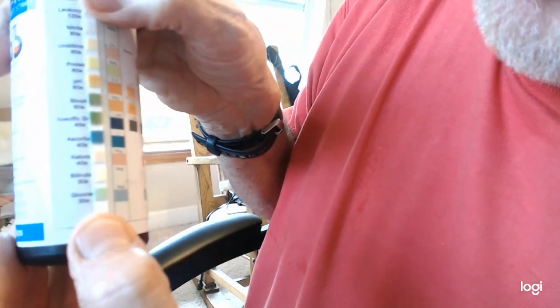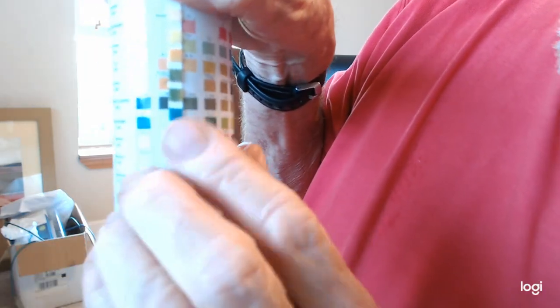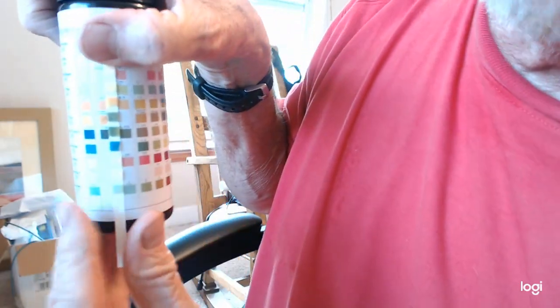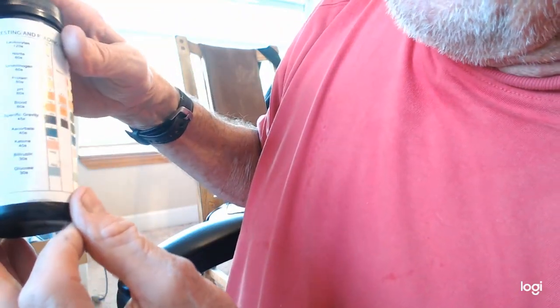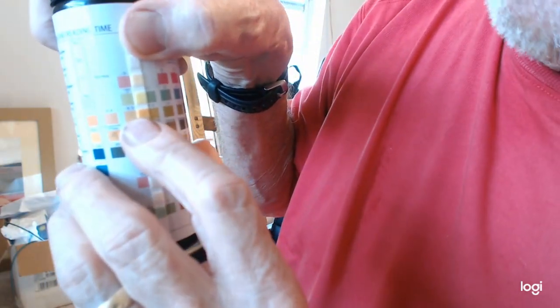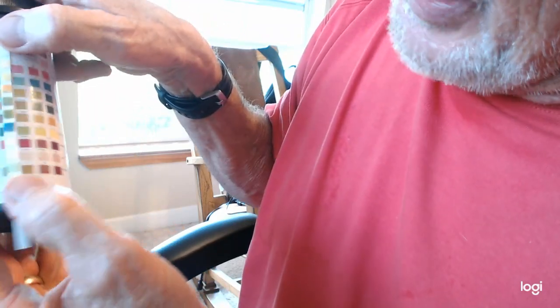Specific gravity is fine. Glucose, you can see the very bottom one, the color is fine. It doesn't have glucose. It doesn't have protein. The specific gravity is still about 1.010. That's this one right here, so that's about the right color. So 1.010 is perfect for that. The pH is about, look here, 6.5. Is that right? Yeah, about 6 or 7. 6.5, that's perfect. The pH is perfect on this. The only thing this has is blood.